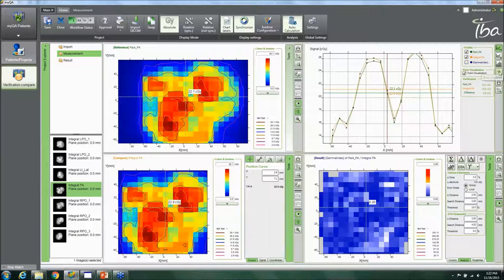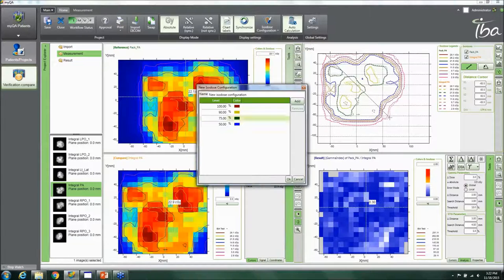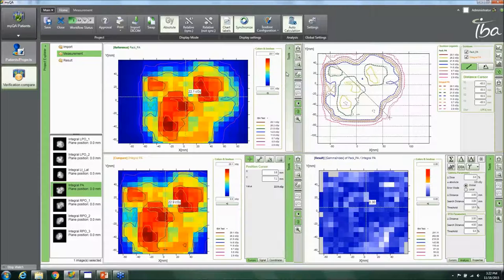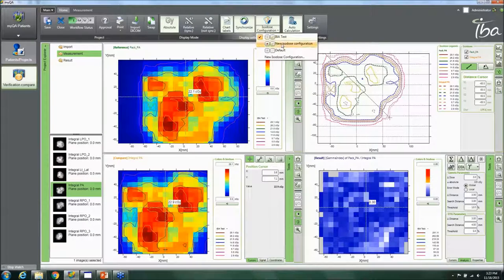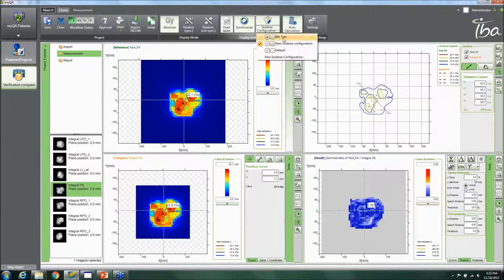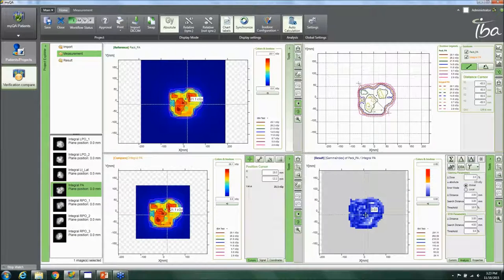You can also look at isodose lines — zooming in to see the reference as well as the measured isodose contours side by side. There's an isodose configuration panel where you can select or create a custom isodose configuration and choose which preset to apply. You can also calculate DTA directly.